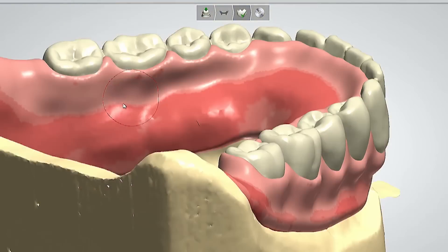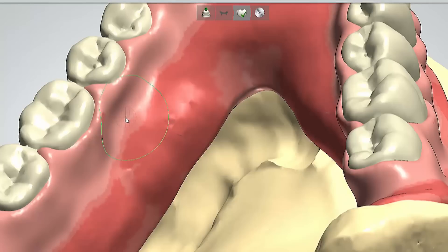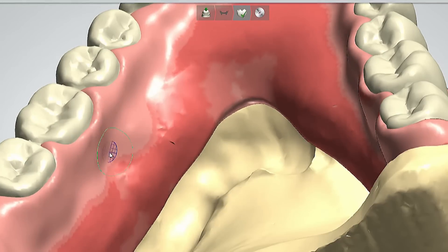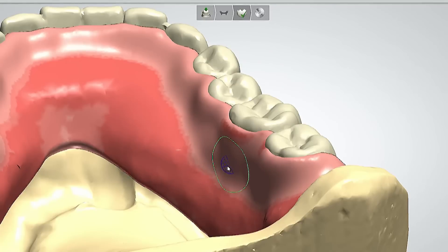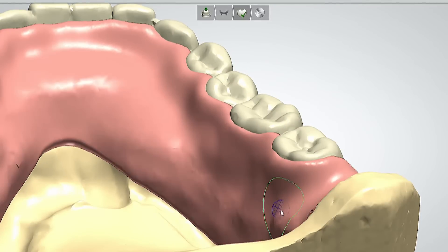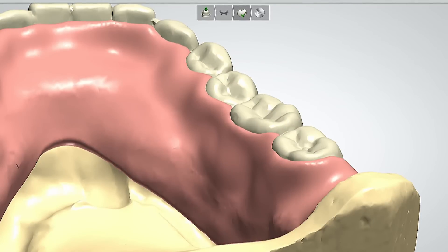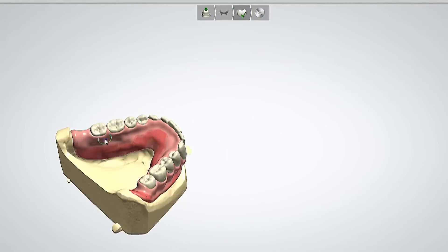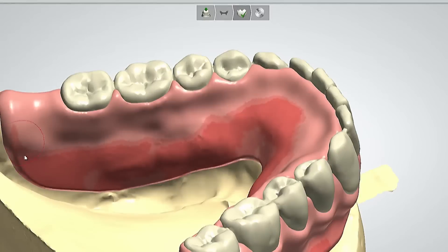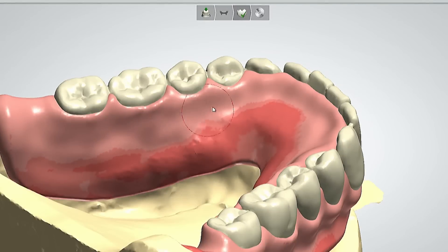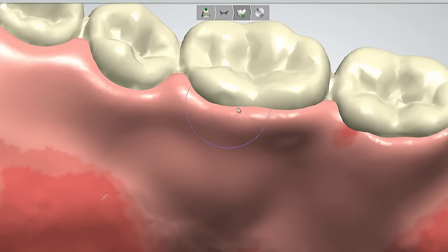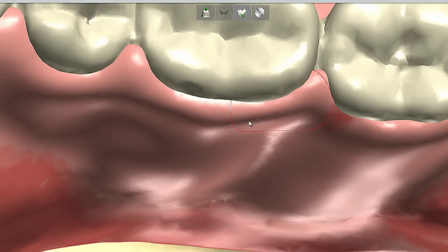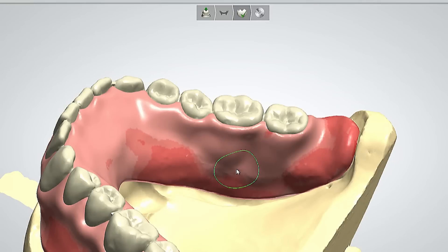Another benefit of these softwares is that you can set a thickness for your denture base, giving you a uniform thickness. Sometimes when using wax, it's hard to tell how thick the denture base is going to be — in some areas it might be thinner than others. In this situation, the technician has full control of that. In areas that appear a little darker pink, the technician can add a bit more material to make things even.